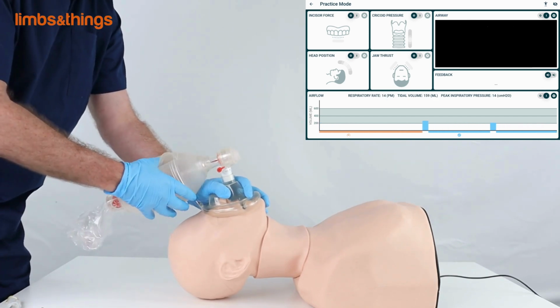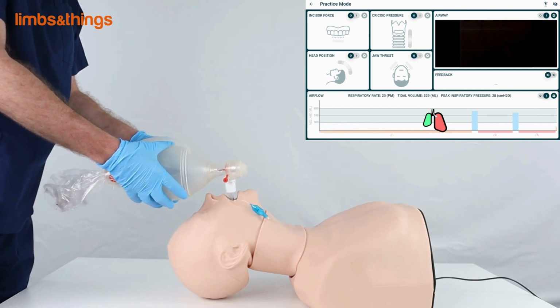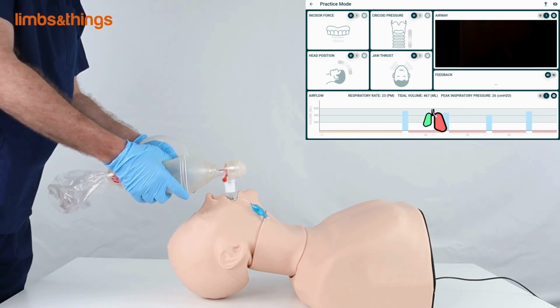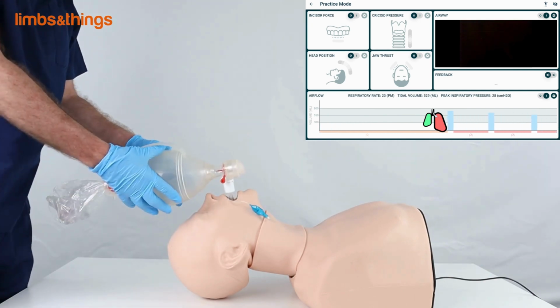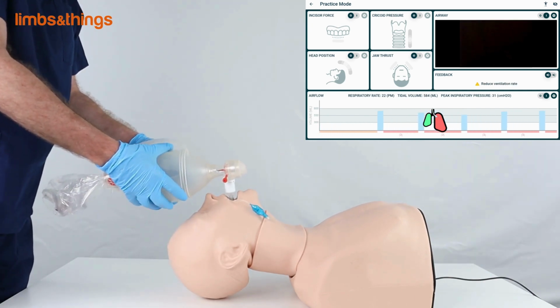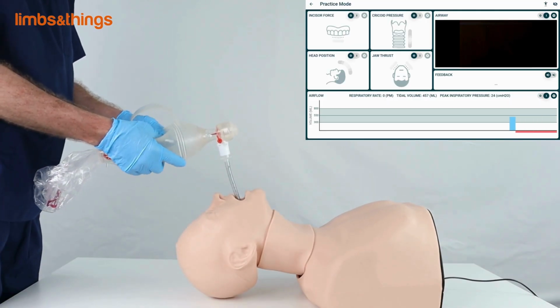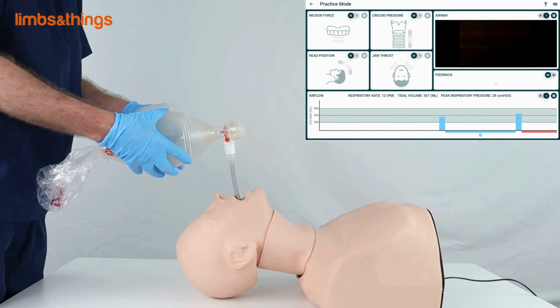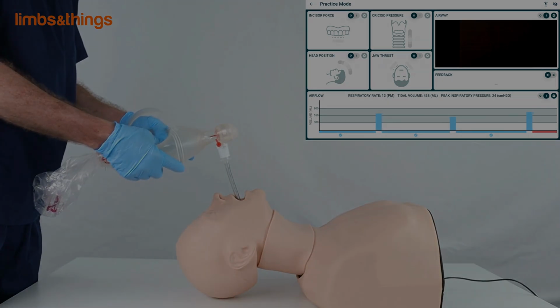Additionally, this allows the user to get visualizations of the lung volumes via bar graphs and pressure curves. This will give them feedback on respiratory rate, tidal volume, and peak inspiratory pressure. The app can discern accurate adherence from inconsistencies in established best practices, creating transparent pathways for targeted refinement. Real-time icons along with audio and text commentary provide feedback to the user, allowing them to better their technique.